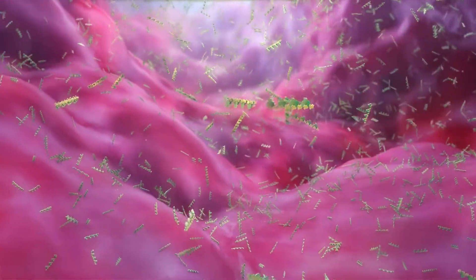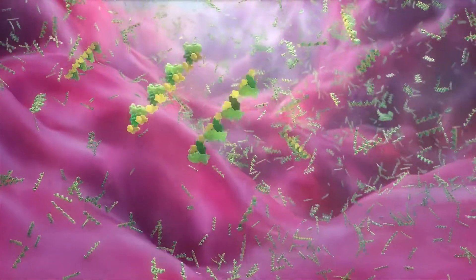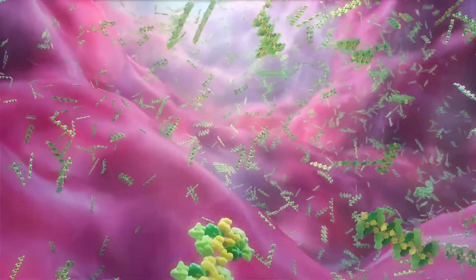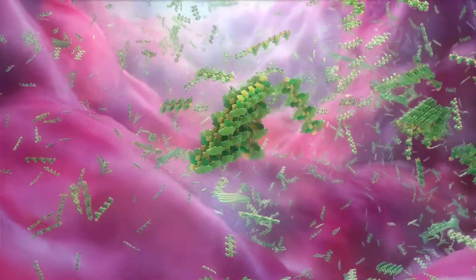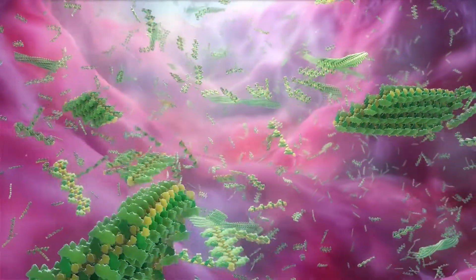Upon exposure to ionically charged wounds, the peptide strands self-assemble or physically build themselves into a series of highly ordered nano-fiber structures.